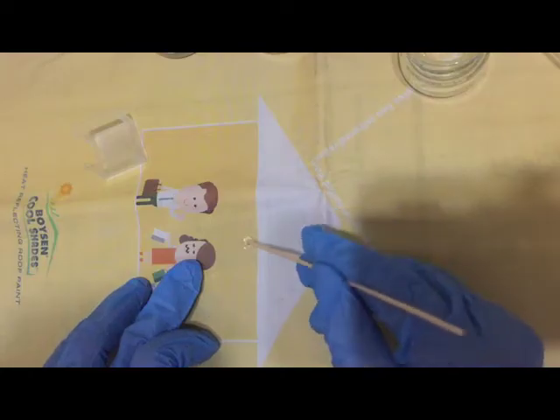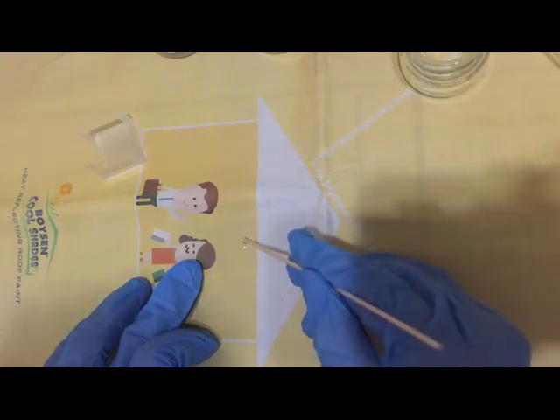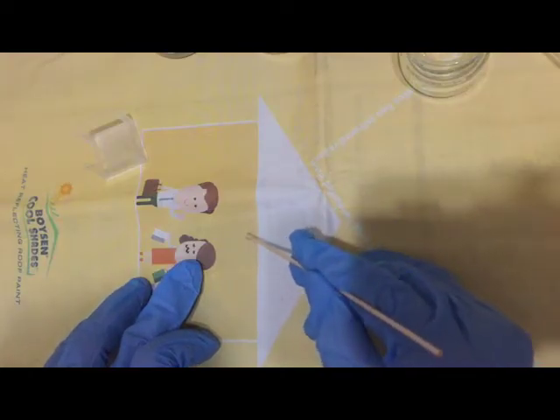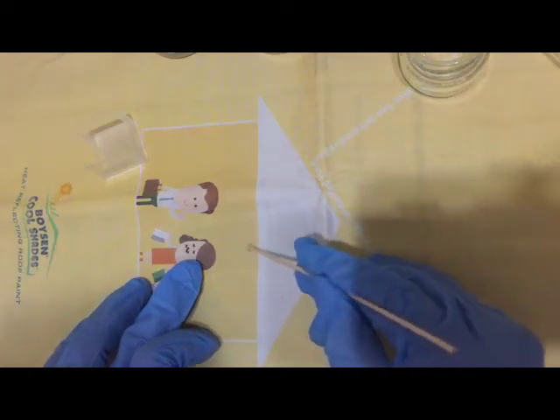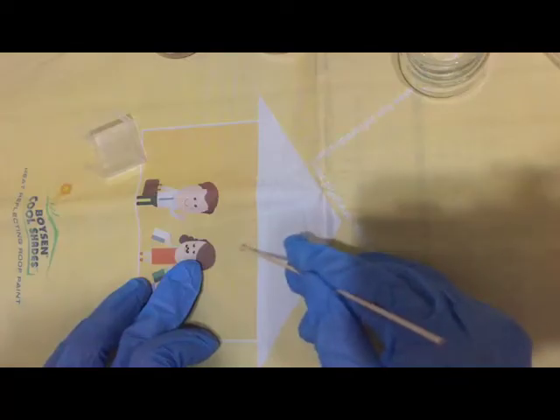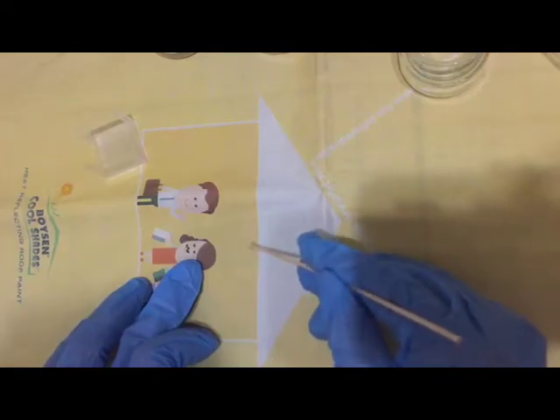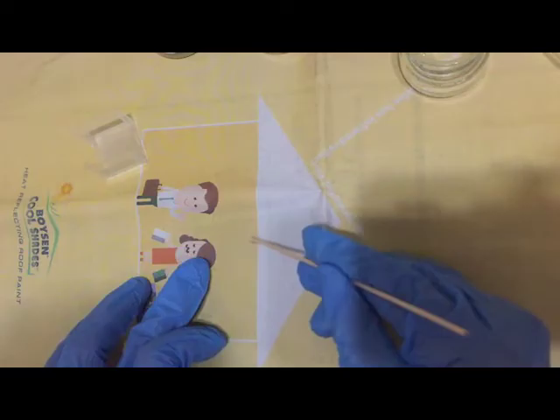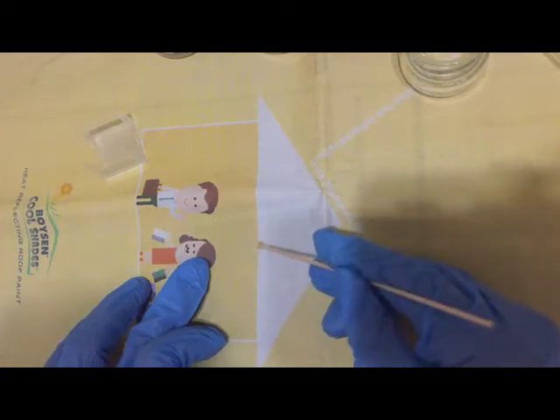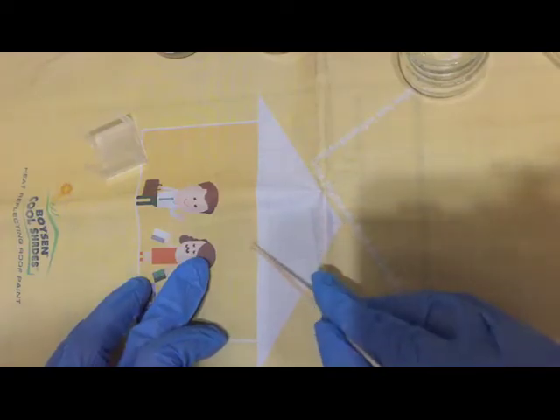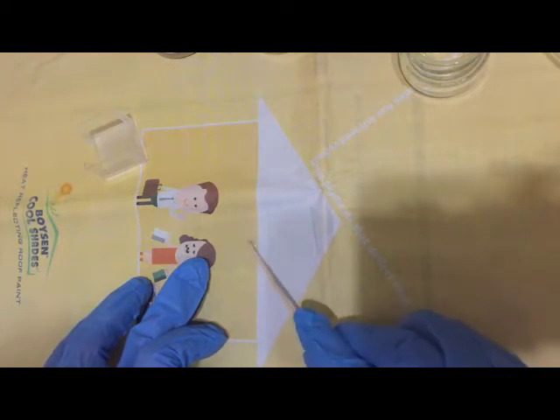into the drop of NSS placed at the center of your glass slide and you emulsify the entire solution. You swirl a little bit to make sure that most of the stool sample material dissolves in the water.